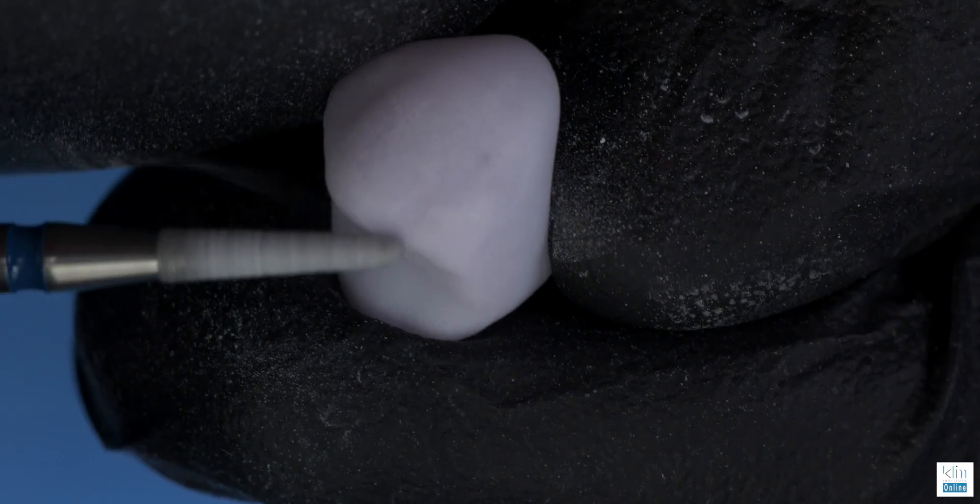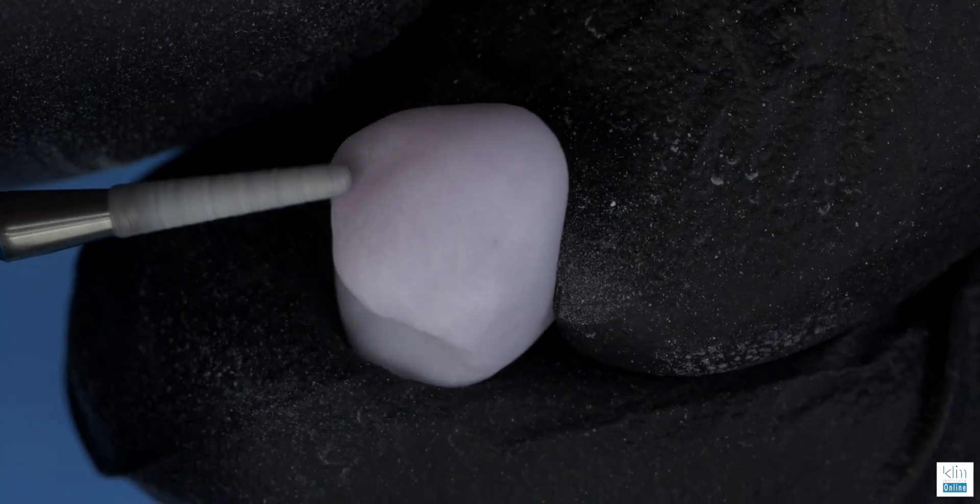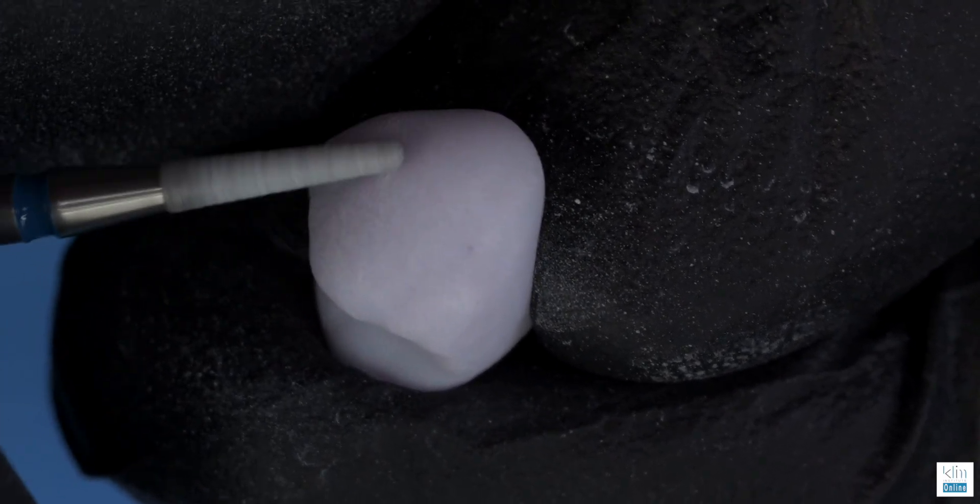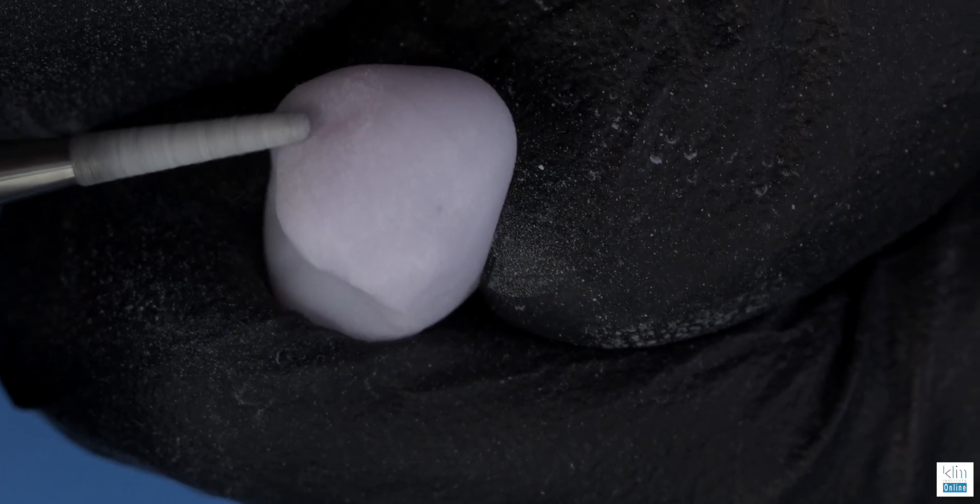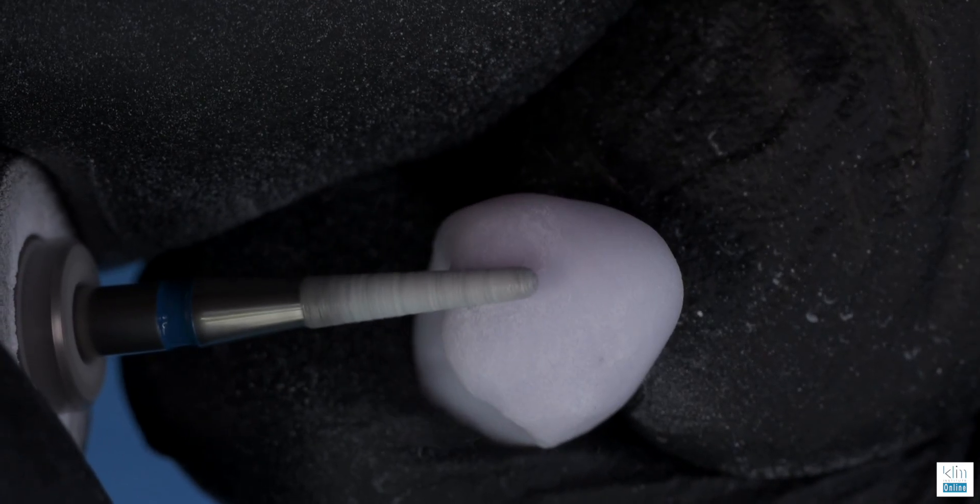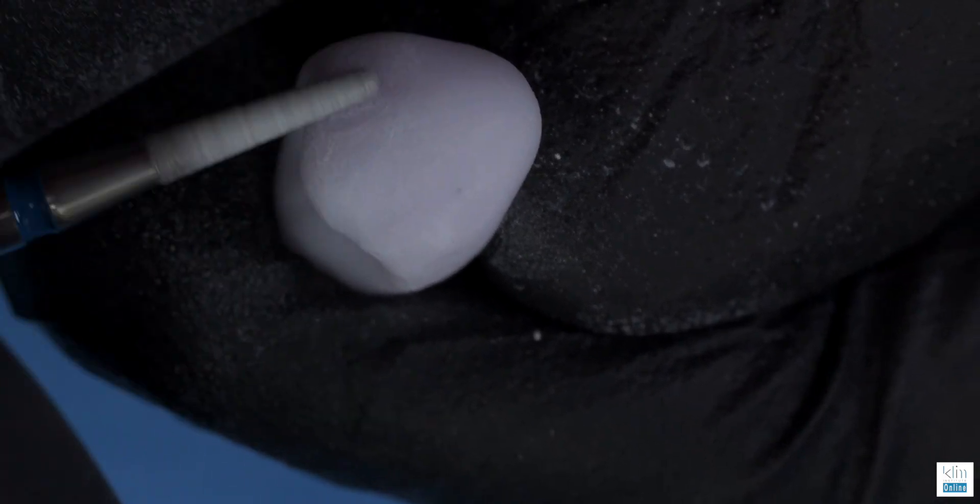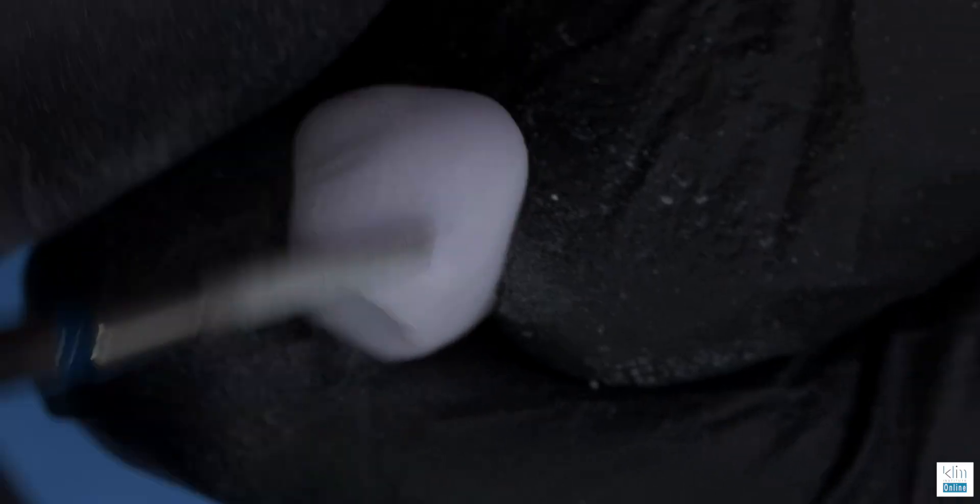The Thompson depression there on the mesial of the cusp. Notice that we scribe and scrub. When you're shaping, you're scribing what you want to accomplish with your texturing, then you scrub afterwards to neutralize and make it look natural.